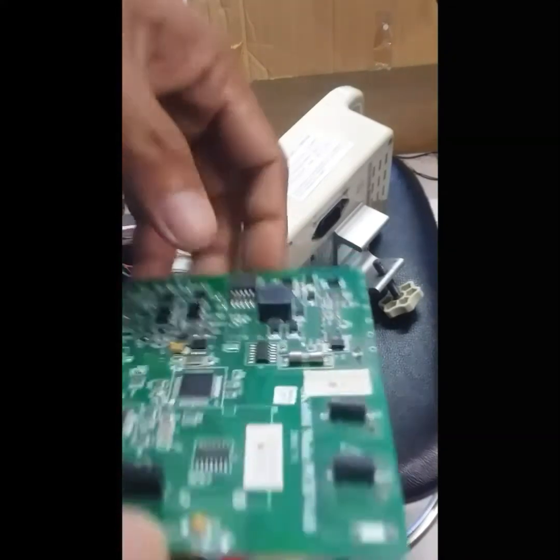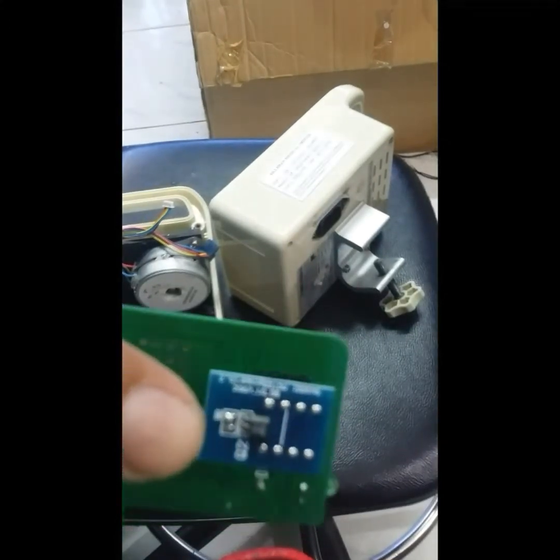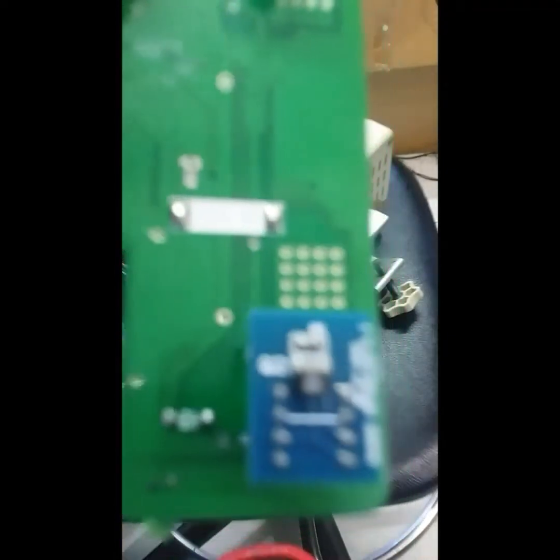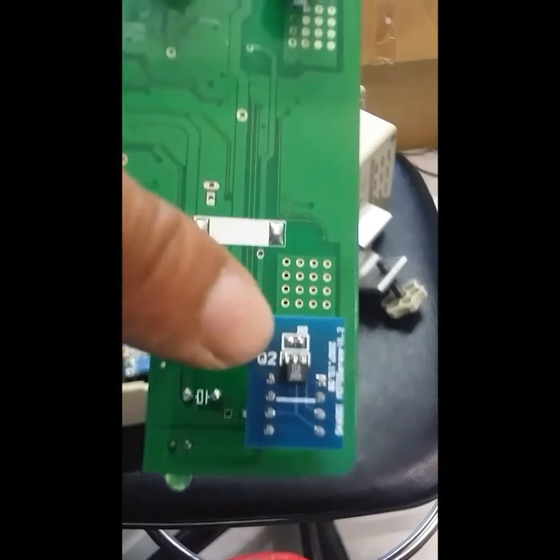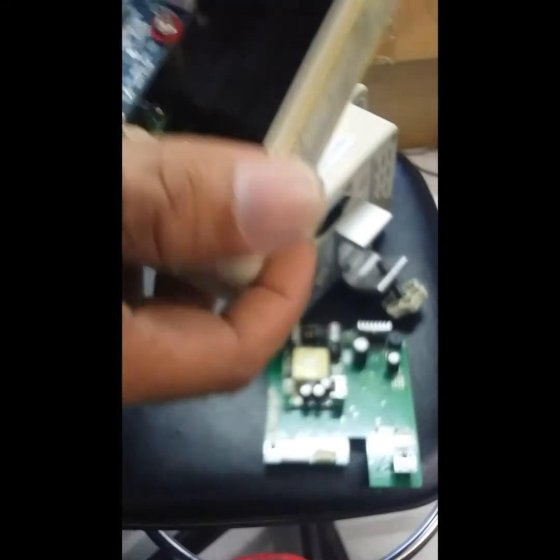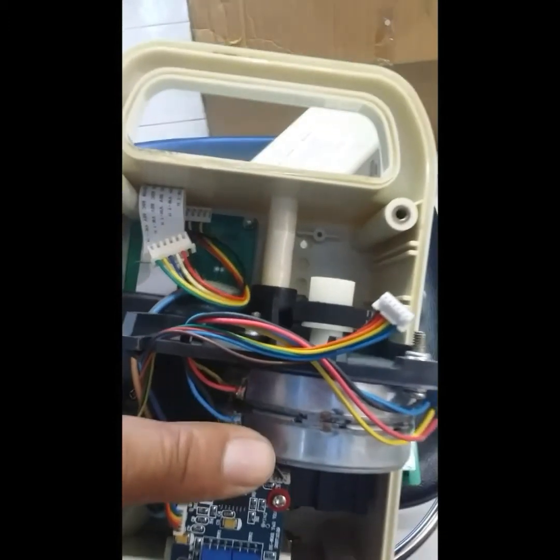And this one right here — this is where the rotation sensors of the motor are. It sends the rotation signal from the motor. And here we go — this is the motor. This is the motor's output.